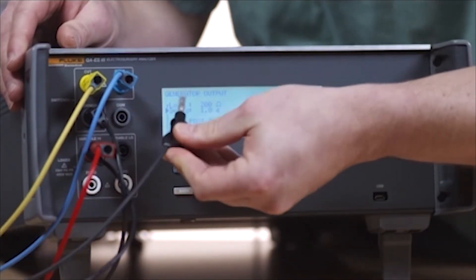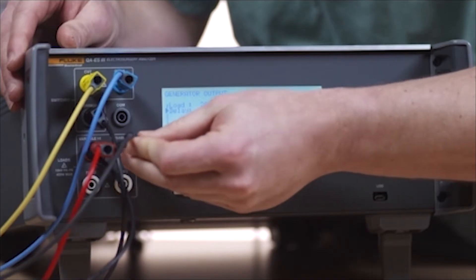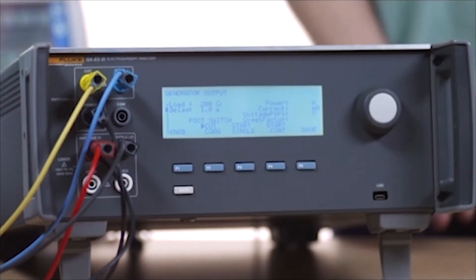Use a stackable connector to connect one of the ESU neutral electrodes to the variable low jack.